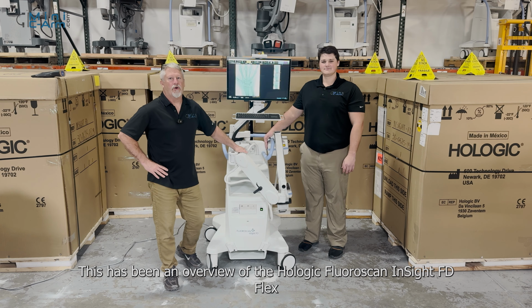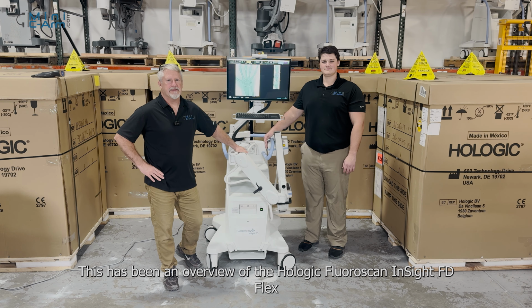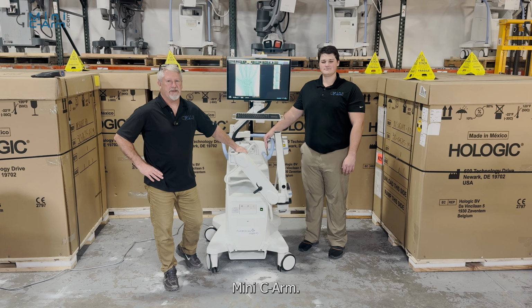And all right, this has been an overview of the Hologic Fluoroscan InSight FD Flex Mini C-Arm.